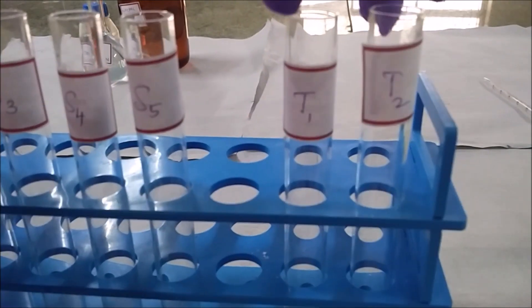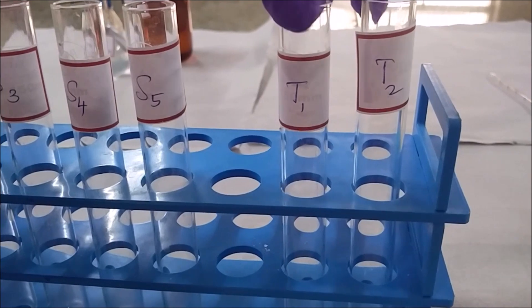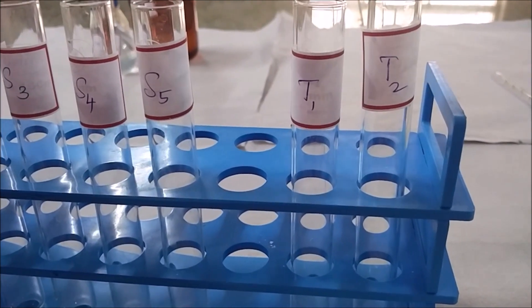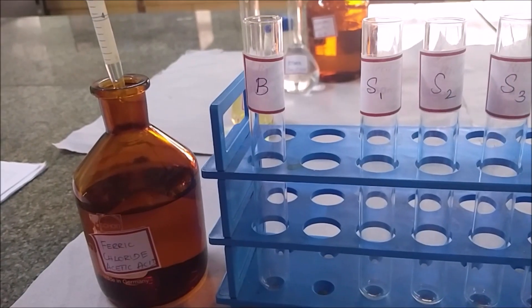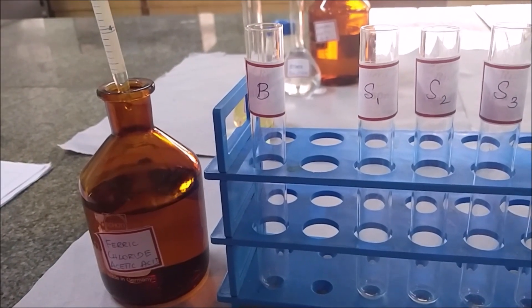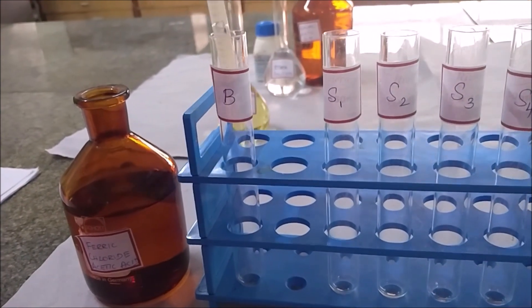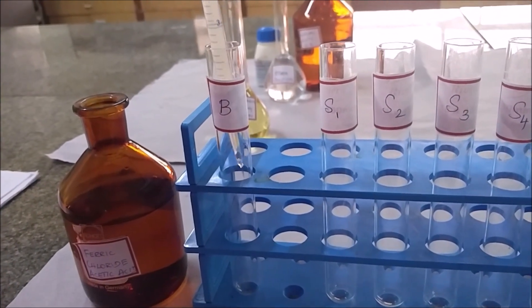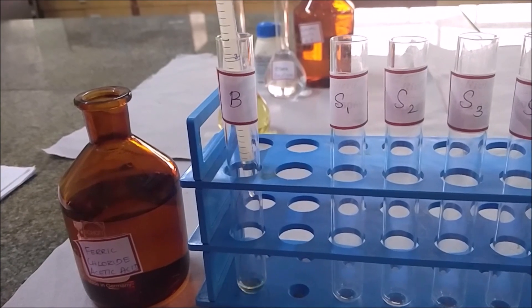The test samples are taken in two test tubes, labeled Test 1 and Test 2. Then 5 ml of ferric chloride acetic acid reagent is added to the blank.